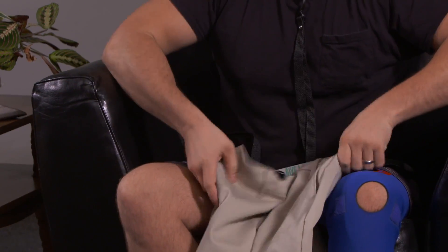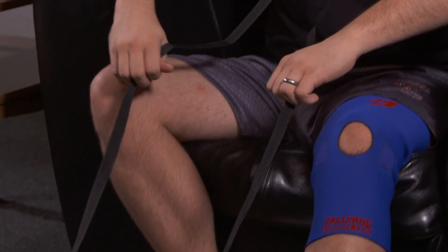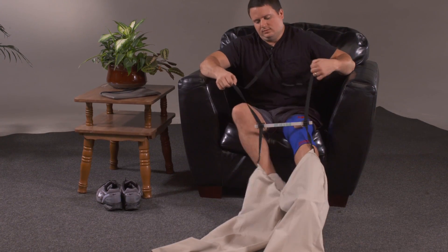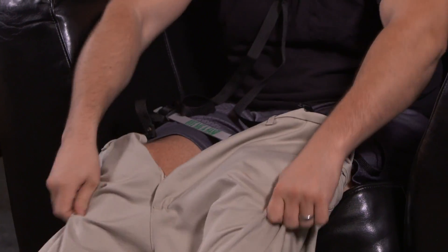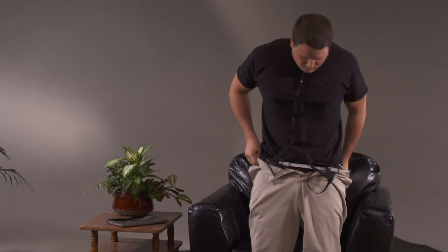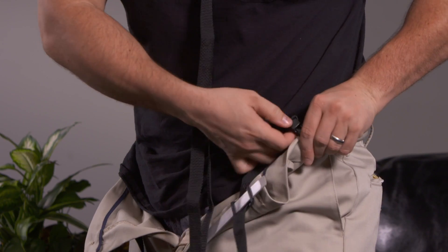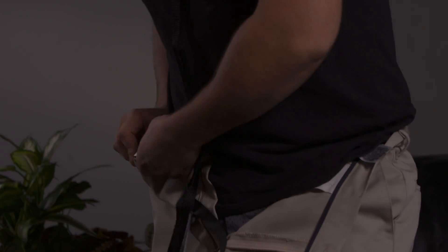Then lay or cast the garment out in front of your feet. Pull the straps to guide the garment over the feet and up on your legs. The bar keeps the garment spread for both feet and provides another way to pull and manipulate the garment. When the garment is clear of the feet, stand and pull the garment around the waist, then release the clips from the waistband with the flick of a thumb.